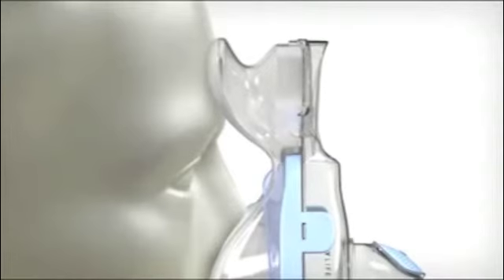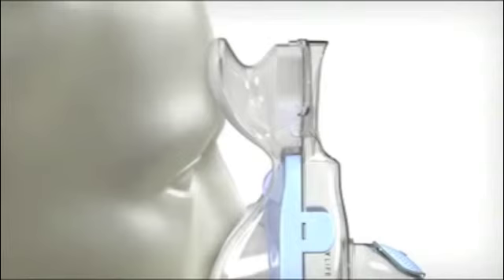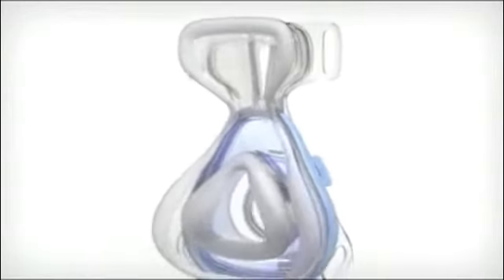Because there is no typical forehead pad, the need for a traditional fitting step is eliminated. The outer support cushion provides intuitive forehead support.